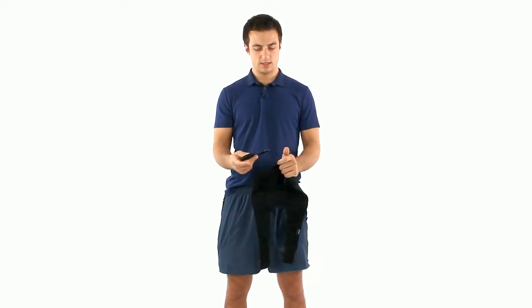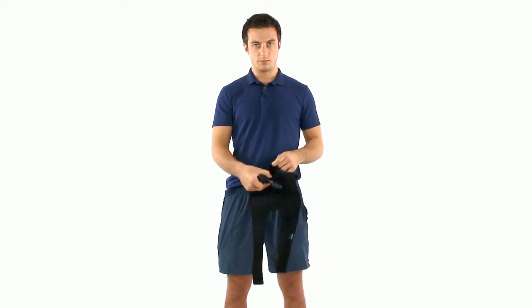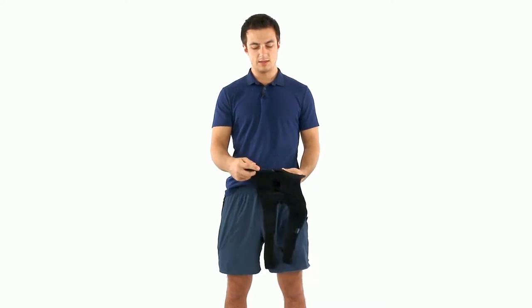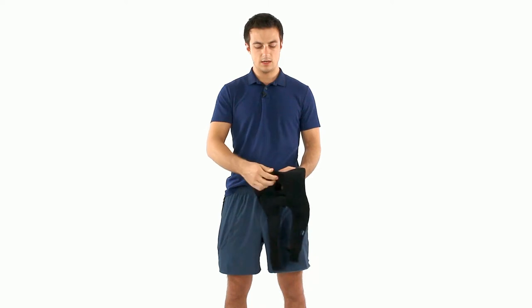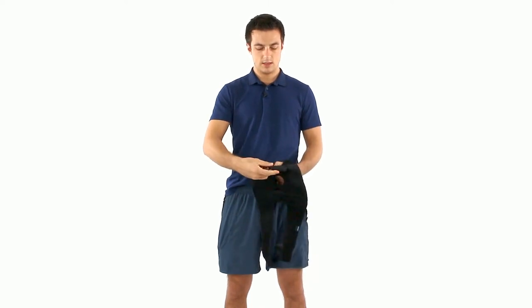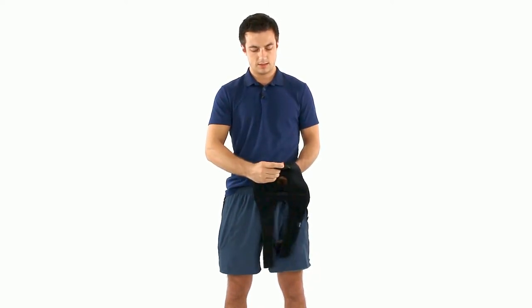It's got that hinge action and there's a slot where you're gonna put it back in. Putting it back in is even easier. You're just gonna bend it, get it in on one side, bend it and put it in on the other.